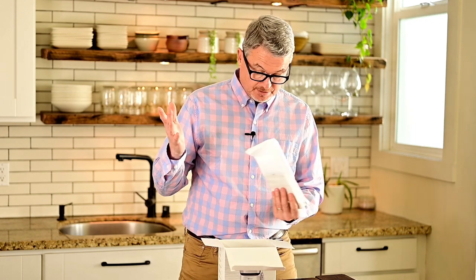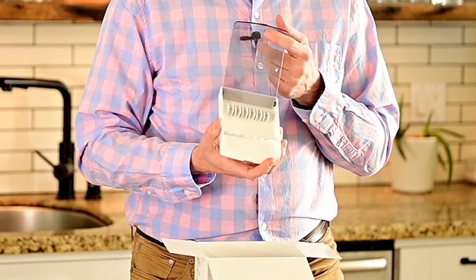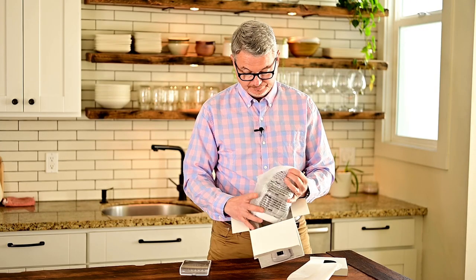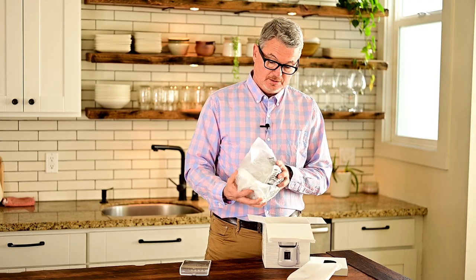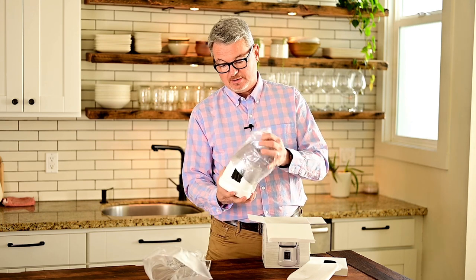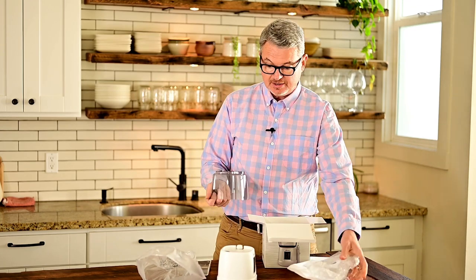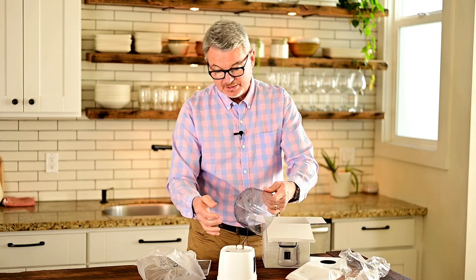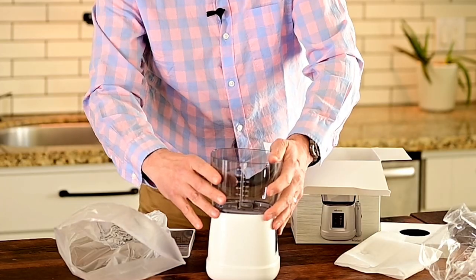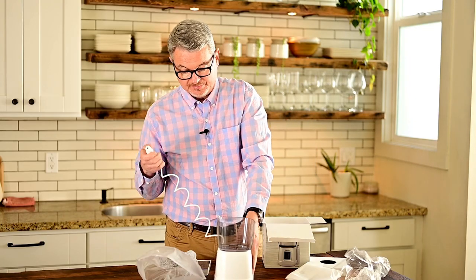The box opened relatively easy. That's to hold all the water tips — there are quite a few, I'll go over those. It seems about the same size as the Waterpik. Quality seems nice, nice plastic. Remember when you plug these things in and fill them with water — make sure this is the water tank — you have to make sure you mount it correctly so the water falls into this device and then gets pumped out via this little handpiece.